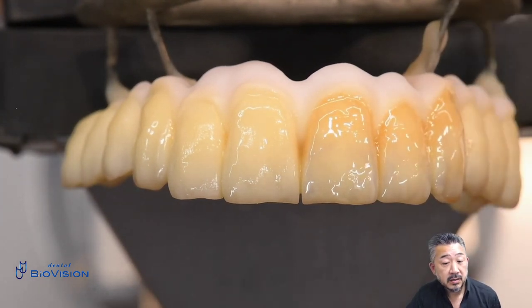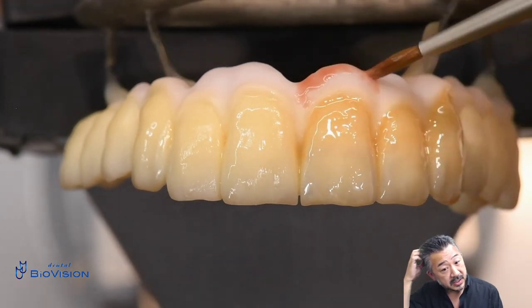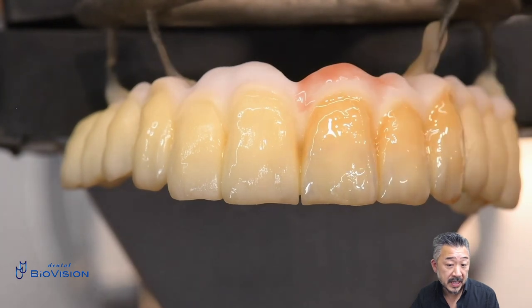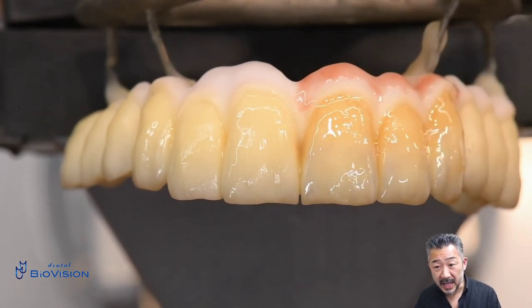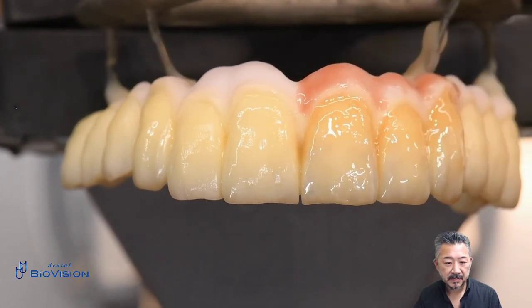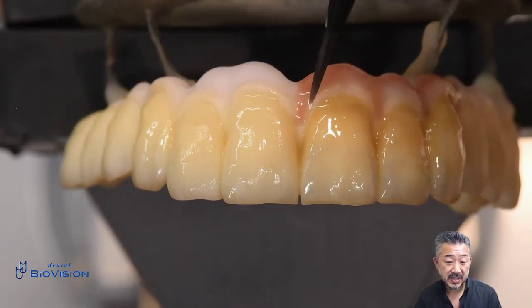The gingival color is reproduced using 3 to 4 types of pink paste. This video is for demonstration so I applied all the paste at once, but in reality it is very difficult to do such a long-span frame in one pass. It is better to apply it in several sessions — in this case, application and firing were repeated three times.